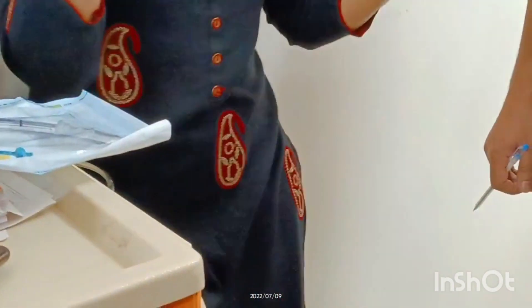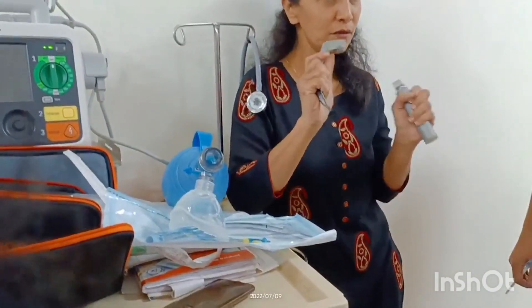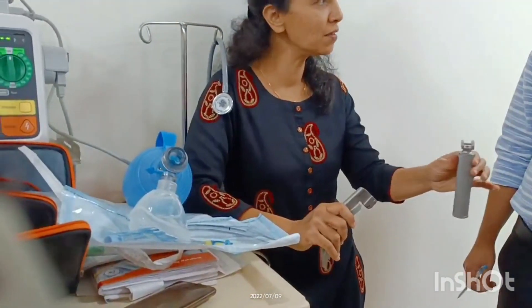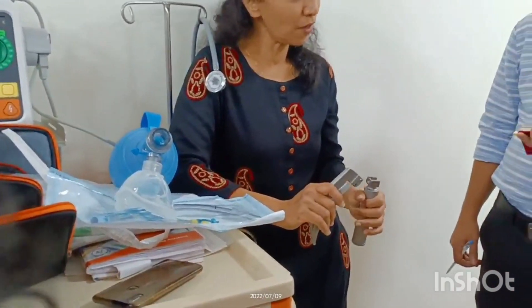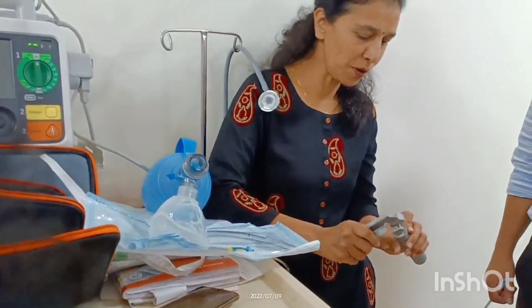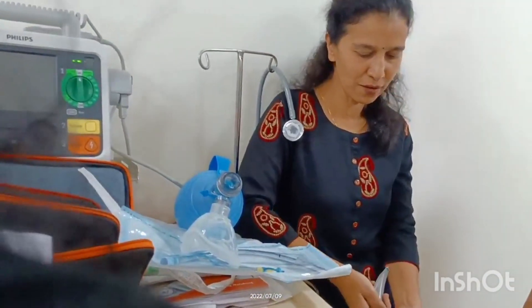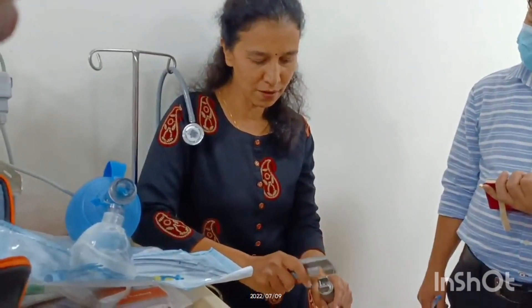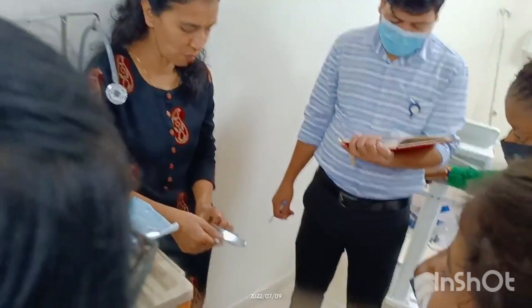If you try to attach the blade while scared or in a hurry, it won't fit properly and you may damage the scope. In emergencies, people get tense and try to force it in the wrong direction — time is lost and the doctor gets frustrated. You should know the correct way: the blade slides and clicks in simply. The latest scopes also have a light density control to increase or decrease brightness.